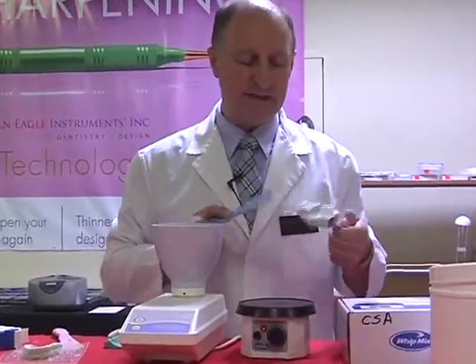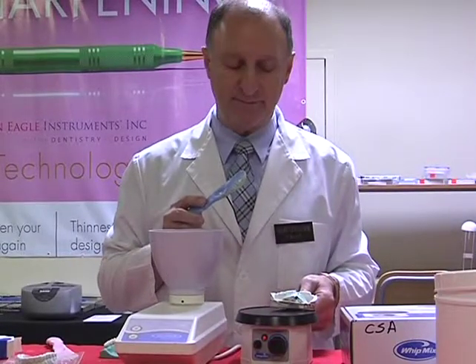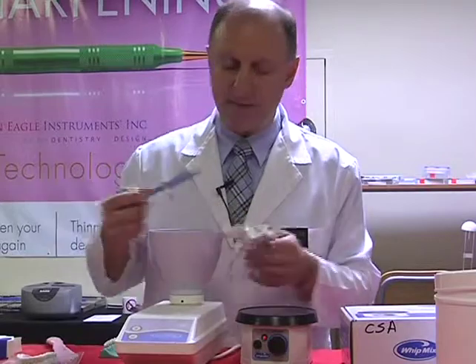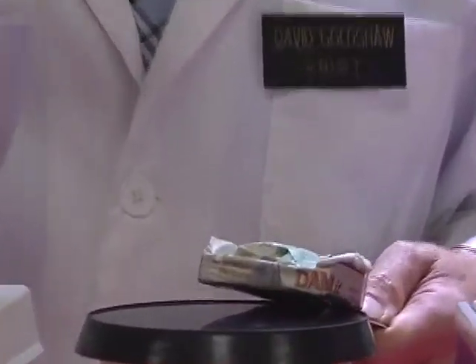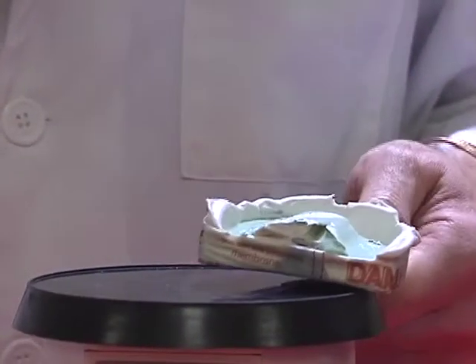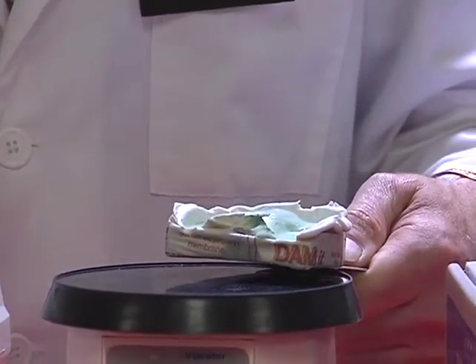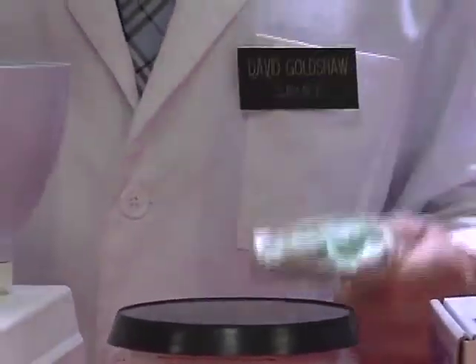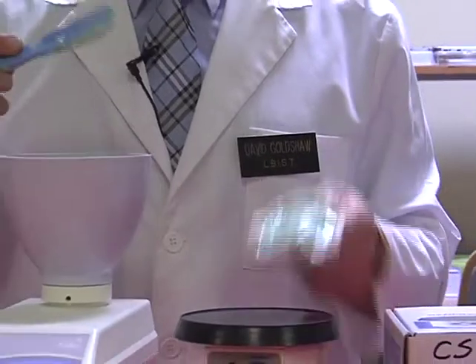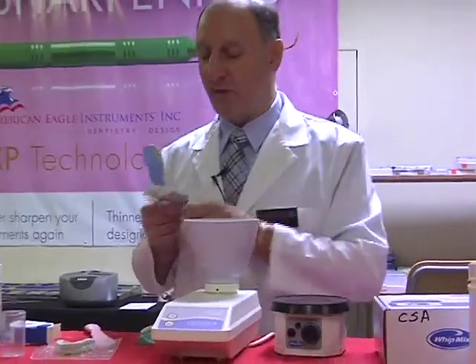Put a small amount of that stone on the surface and just allow it to seep in. Take a little bit more of that material and do the same thing again. Now at this moment I'm just allowing the stone purely to enter through the teeth only. Notice I do not want the stone to vibrate at all at a period of time too long. That's it. I do not want to vibrate anymore, so let's turn this off.